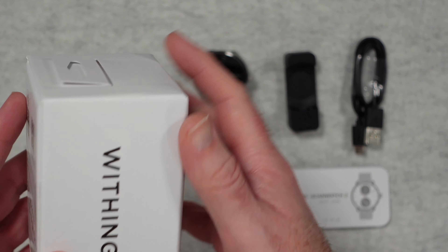So really nice simple box. Inside the box we get a welcome guide on how to get everything up and running very quickly. There are two sizes — a 38mm and a 42mm; this one is the 42mm. There is also a product guide here, and then we also get a charging cable which is full-size USB to USB-C that plugs into the little mini charger.